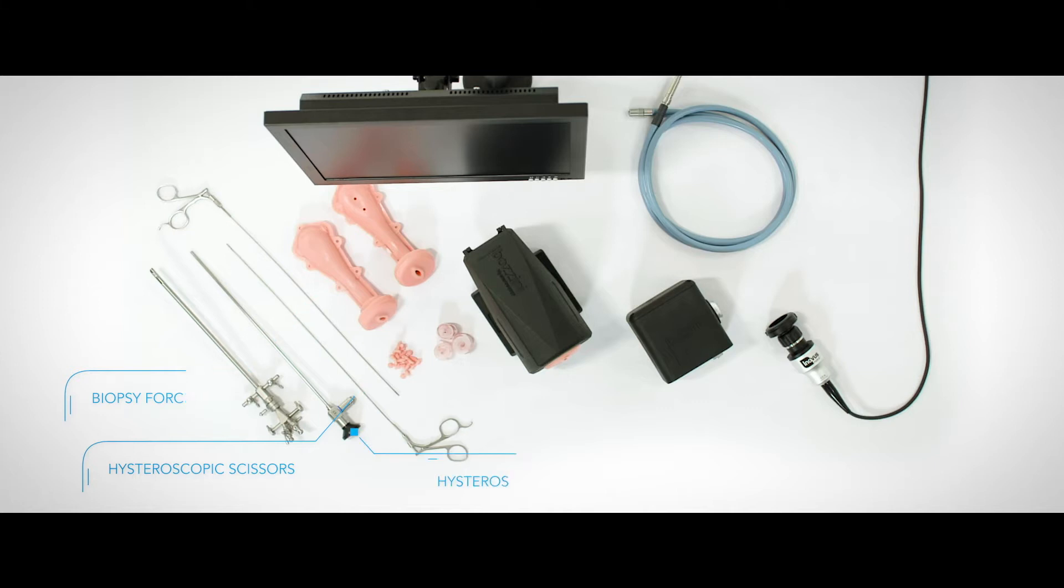The system also comes with a hysteroscope and obturator, with an option of either a zero degree scope or a 30 degree scope, depending on user preference.